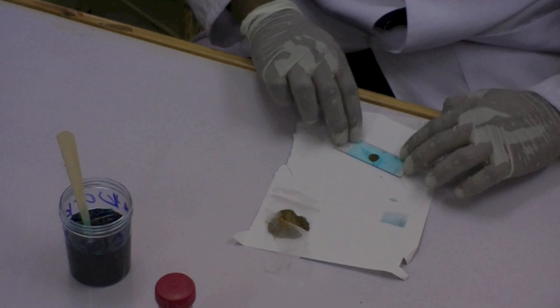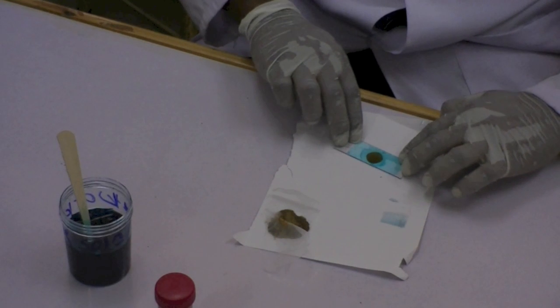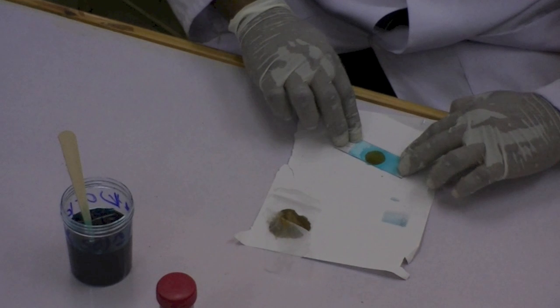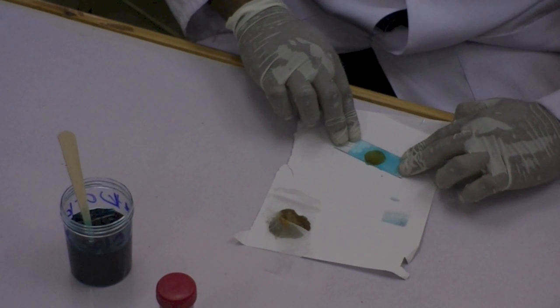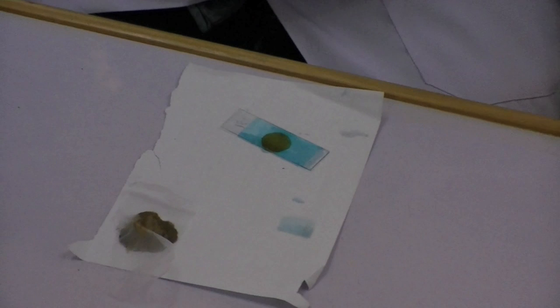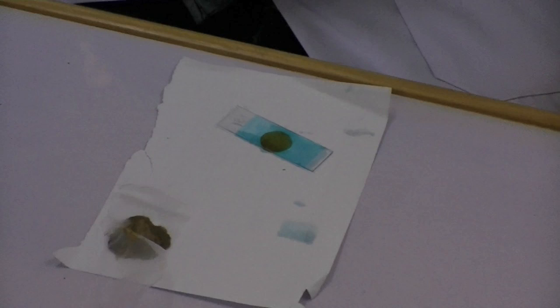Invert the microscope slide on a smooth hard surface and firmly press the stool sample against the hydrophilic cellophane strip. That way the stool will be spread evenly between the microscope slide and the cellophane strip.